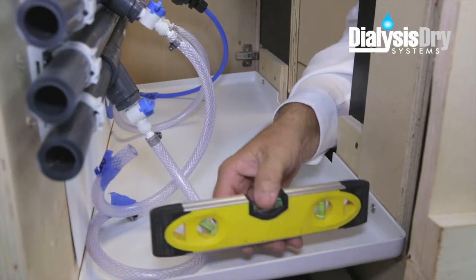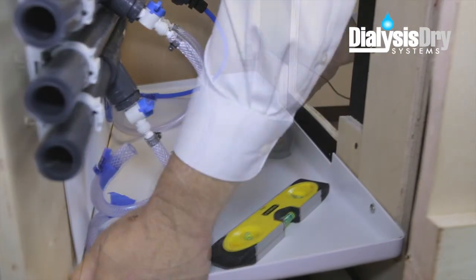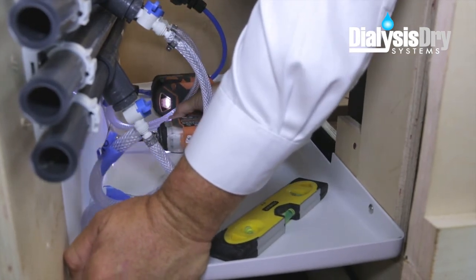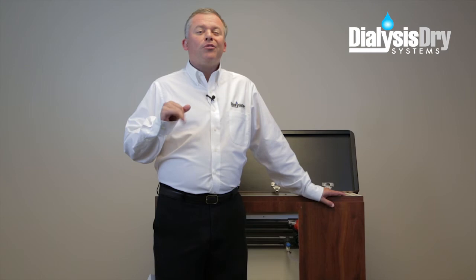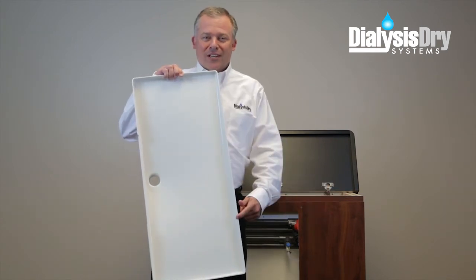The supplied screws are stainless steel and will not corrode under damp conditions. With all of the screws in place, the tray should be securely mounted to the cabinet's interior. But for maximum stability, you can also attach the tray to the back wall. If the depth of your cabinet happens to be more narrow, notify us when ordering and we can provide a custom modification for your project, or you can do the modification on site by trimming the back side of the tray to fit.